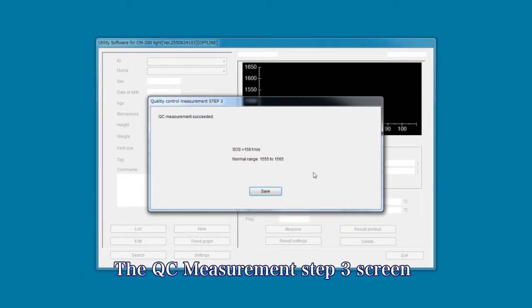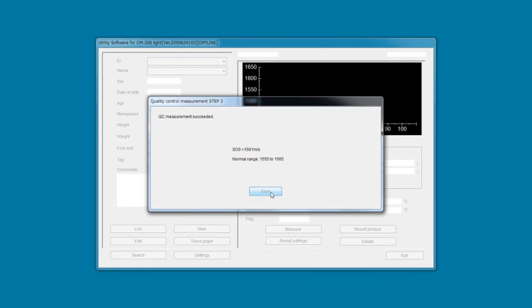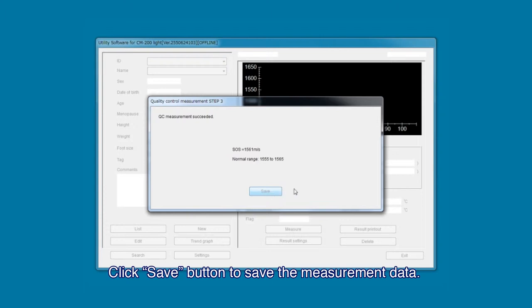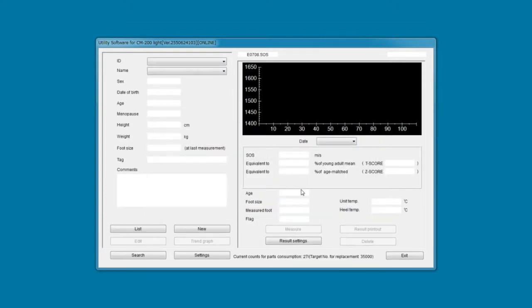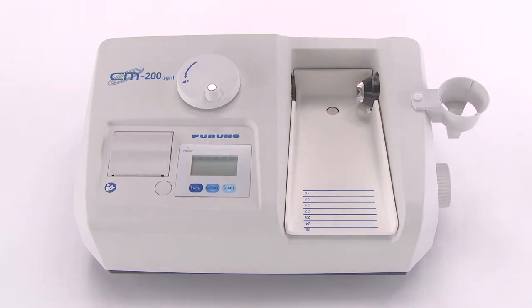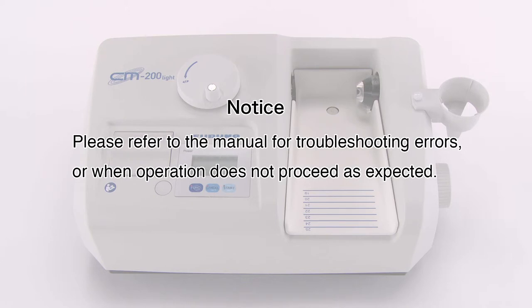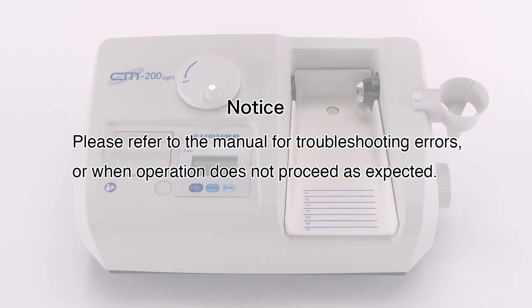Once the quality control measurement is completed, the QC measurement step 3 screen is displayed. Click the save button to save the measurement data. This completes the quality control measurement. Please refer to the manual for troubleshooting errors or when operation does not proceed as expected.